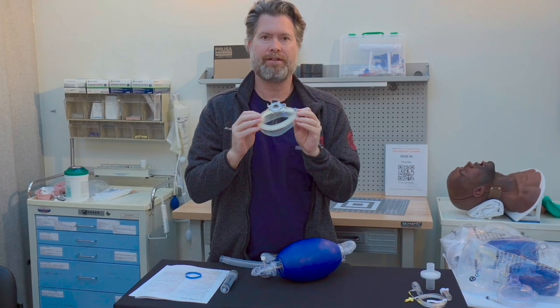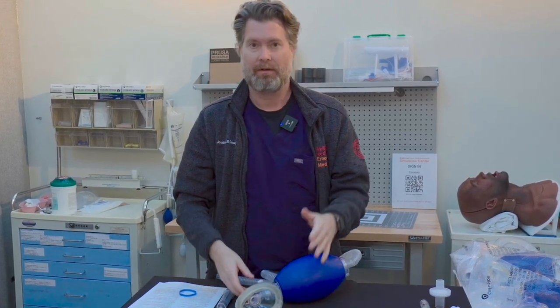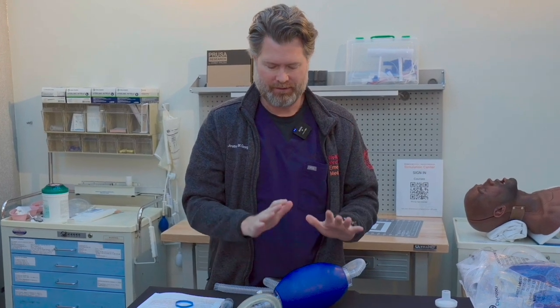So that is all the features of a standard BVM. I'm glad you're interested in this unboxing. Go ahead and review this video, then head to our website, theprotectedairway.com, and look at all of our content on how to optimize this device and use it successfully in any environment that requires oxygenation of a patient in a rapidly evolving airway. I look forward to seeing you on the other side of this video.